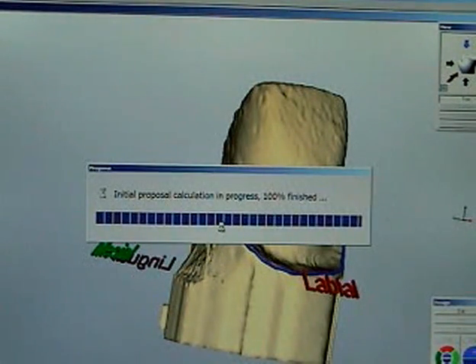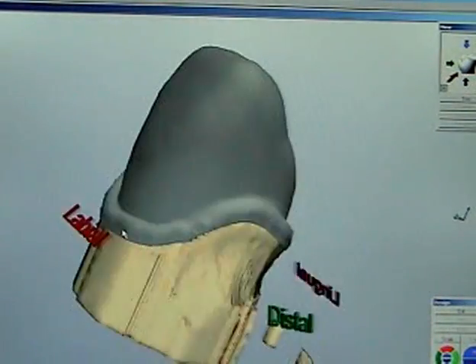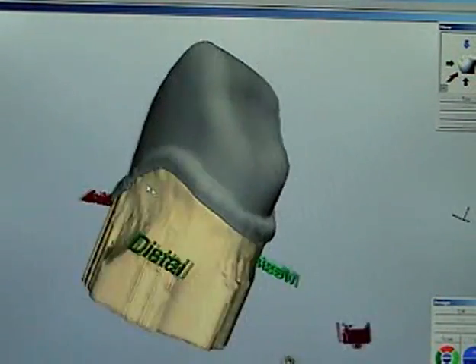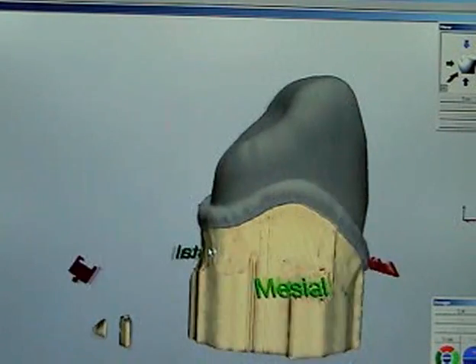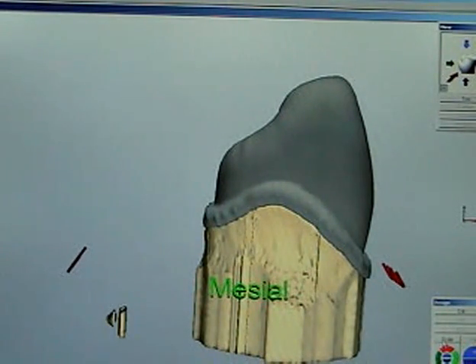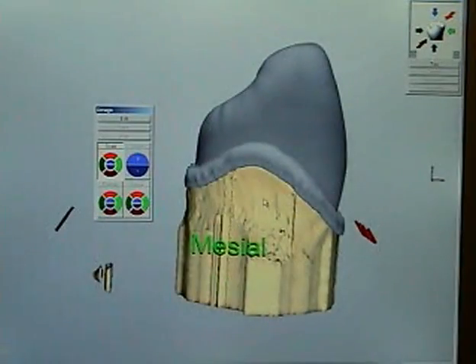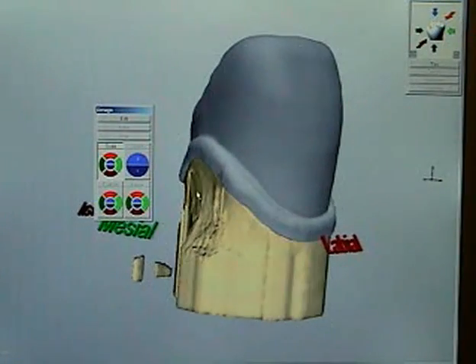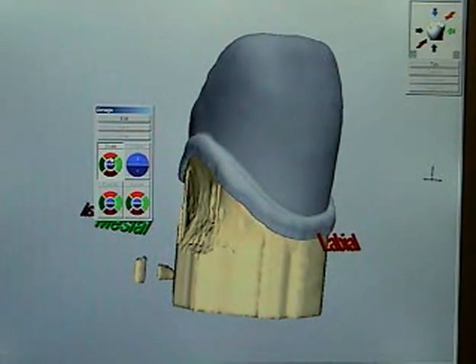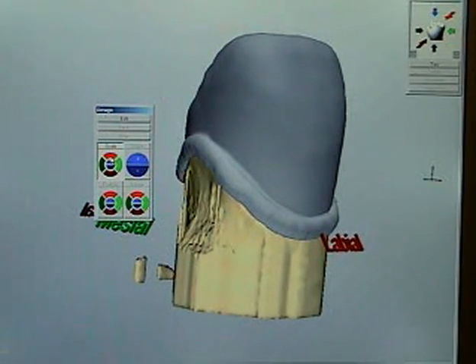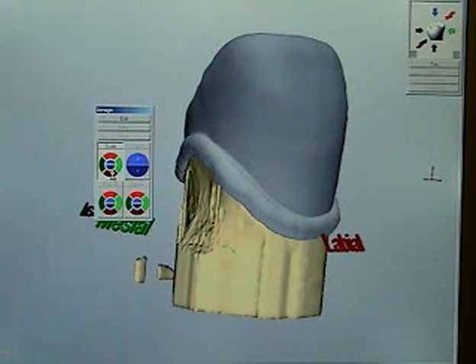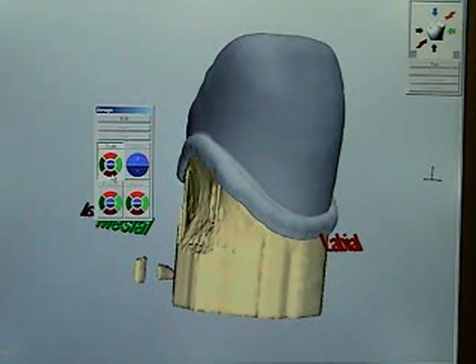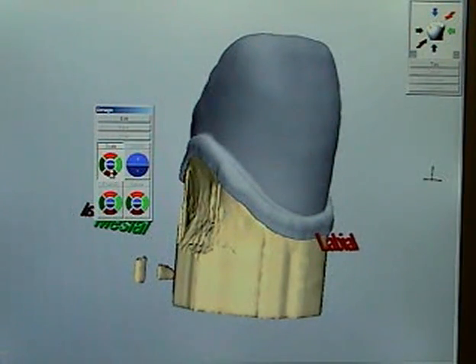That is a warning that if we see any red on our rendered coping, it might be a bit thin but you can see that this one is good. You can see that it's built a collar all the way round. Now this material, eventually you won't want any collar because it should all be covered with the veneering ceramics and you can change that at this stage. We're going to leave it on this example just to keep it simple and we'll trim it back by hand afterwards.